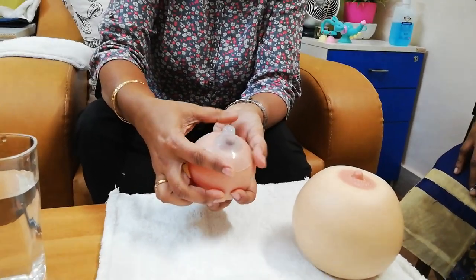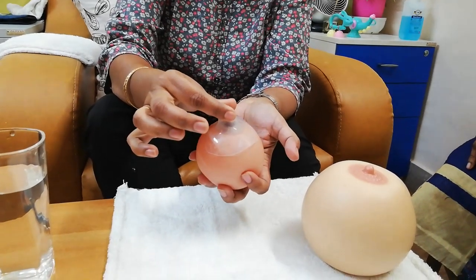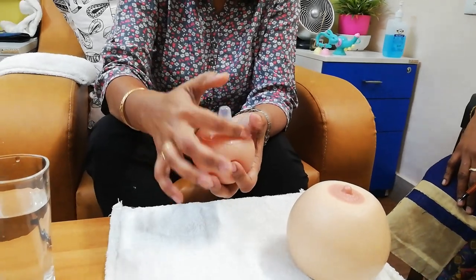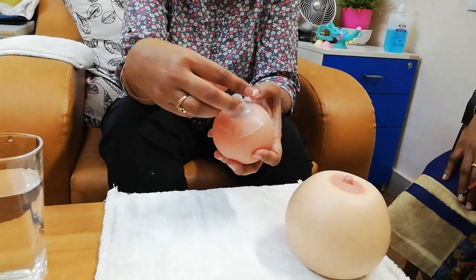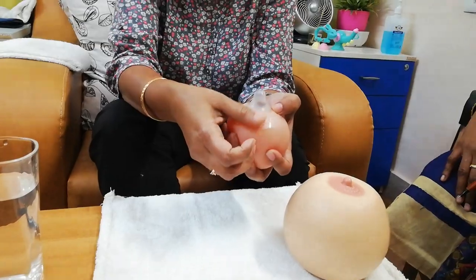When it is getting stuck on the skin, it will pull the nipple — it will not come out. So it is called as it got stuck on the skin. If it is not getting stuck on the skin, at the time the baby latches, the vacuum will not get generated, so the baby will not be able to drink. So it is very important that it gets stuck on top.